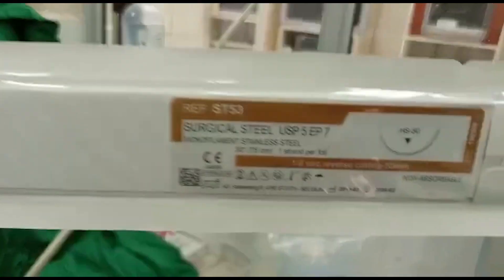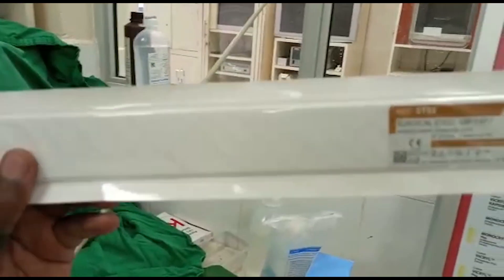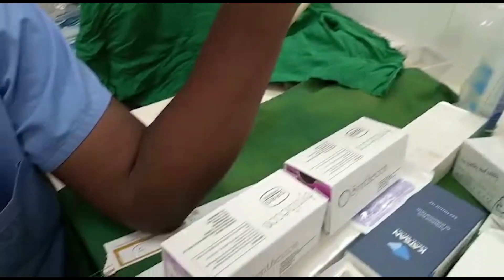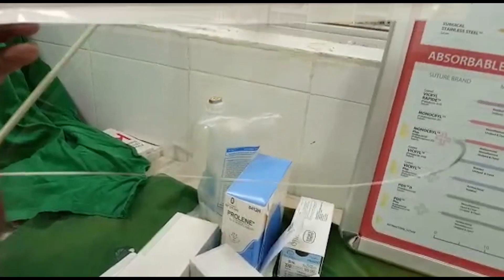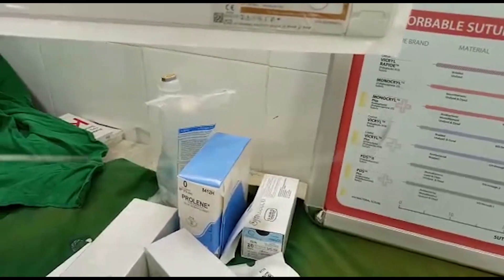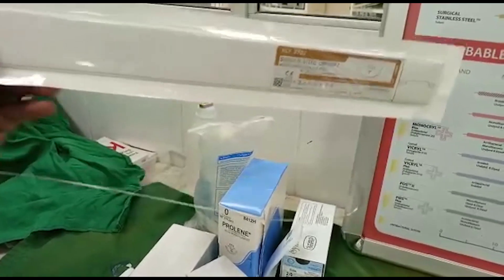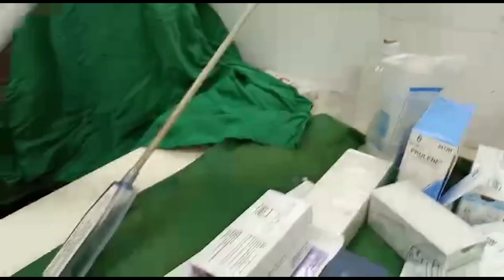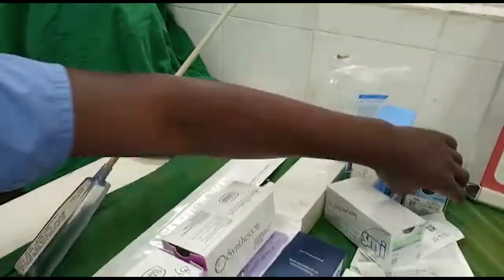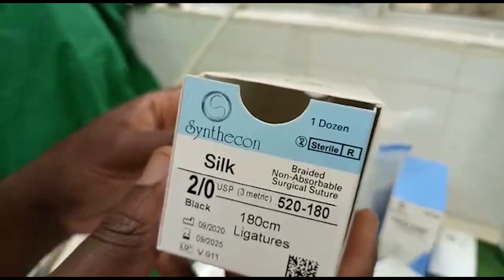Surgical steel sutures come in such packs and are essentially steel wires, as you can see in this example. This pack has not been opened, but we have a sample that shows what is inside. These are also non-absorbable. Our last example is silk suture, which is not in the table but is also one of the non-absorbable sutures.